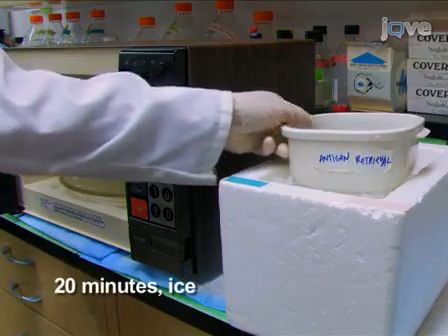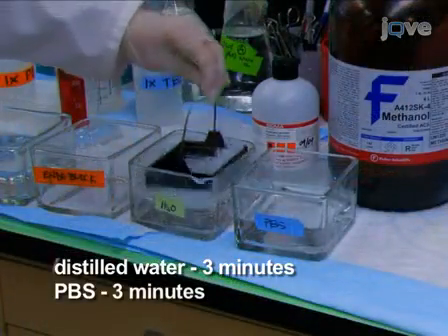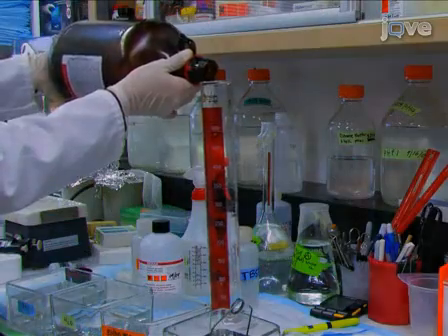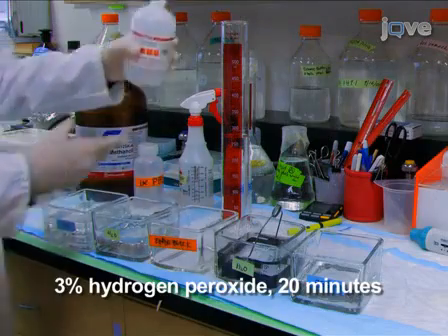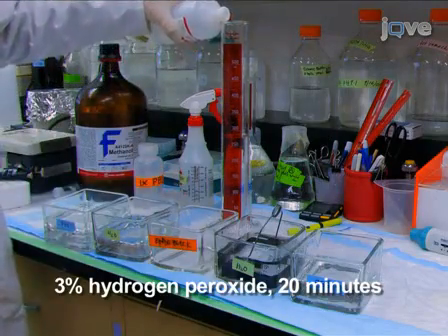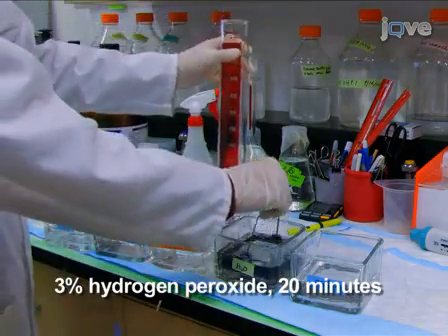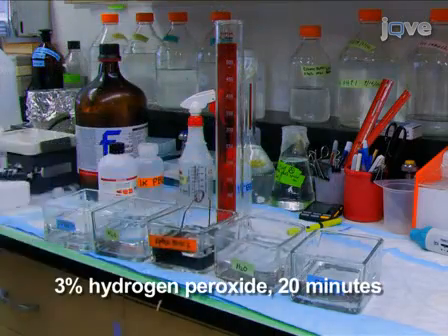After cooling on ice for 20 minutes, the slides are washed in PBS and distilled water for 3 minutes each. The slides are then placed in a solution of 3% hydrogen peroxide for 20 minutes. The purpose of this step is to block endogenous peroxidase activity in the tissue. Furthermore, by blocking this activity, we reduce the nonspecific background staining that may be caused by the antibody.